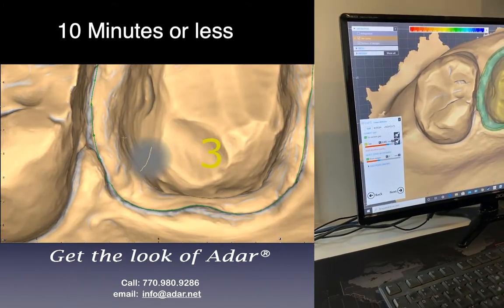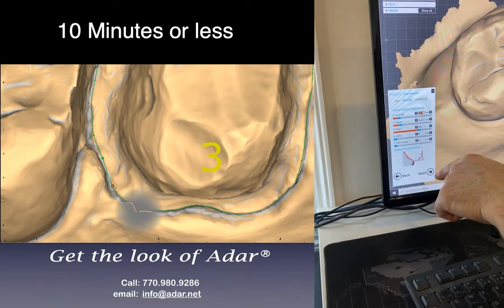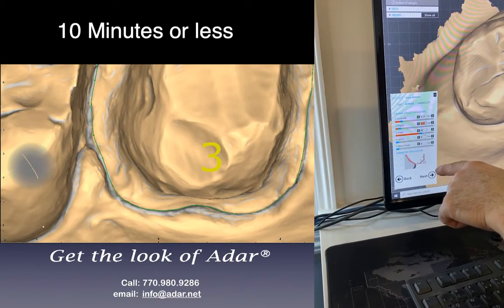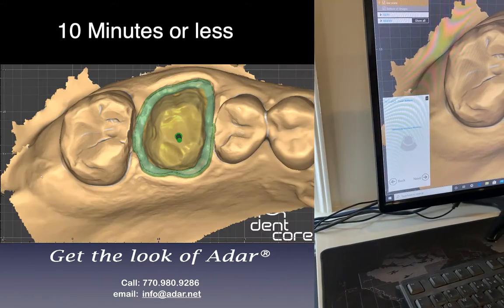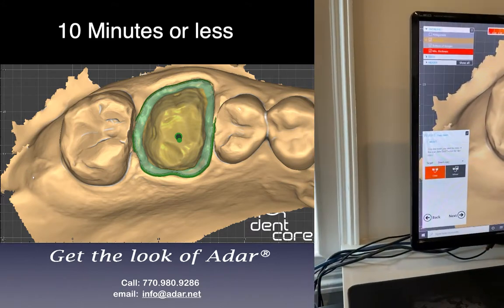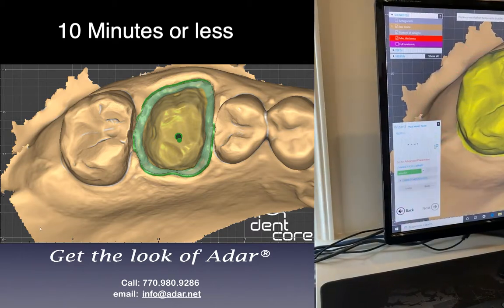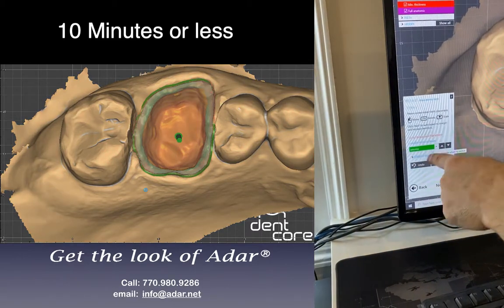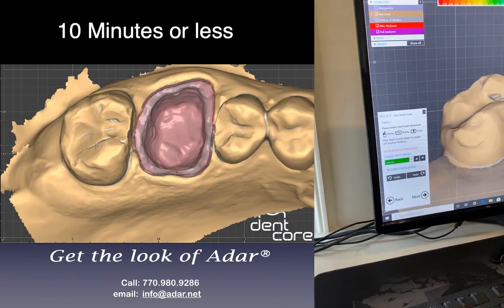Three minutes, 24 seconds. So I'll go to border. I'll change this to 0.15, 0.15, and this one is one. See next. No mirror image because I don't have a nice tooth to copy, so I just go with the proposal of the exocad. As a default I put Astoria, but you can use any teeth library — there's plenty there, too many actually.